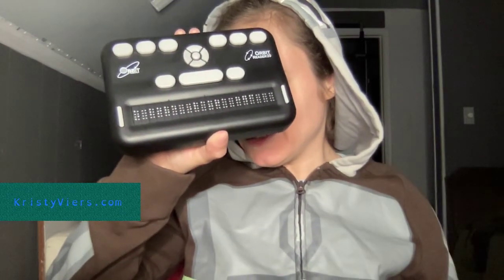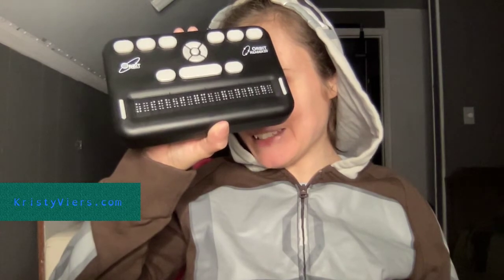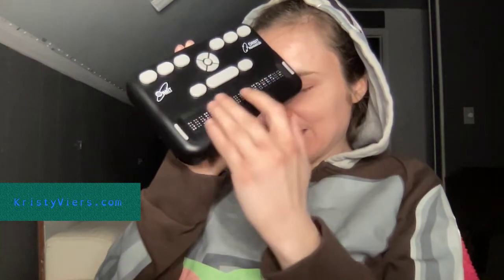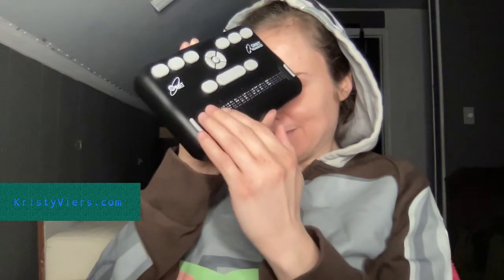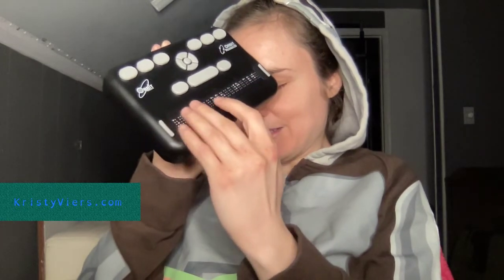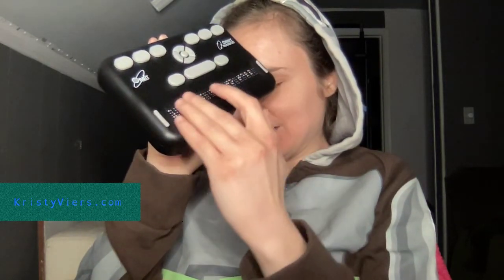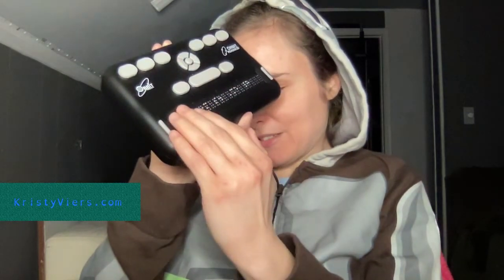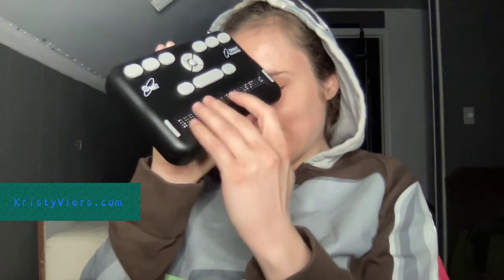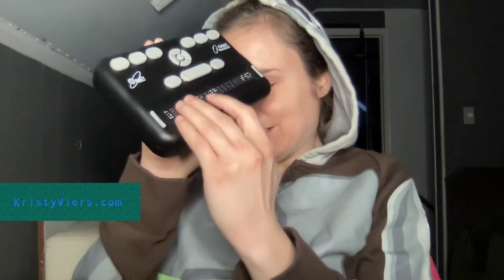Hopefully that's visible on screen — I never know how my videos come out until I get someone to look at them for me. You can see how the dots move by themselves — it's pretty cool. I can read a little bit: 'Prudence had nestled in Sarah's arms and given her the love Laura herself had always felt, even after she'd lost the words to tell her mother.'